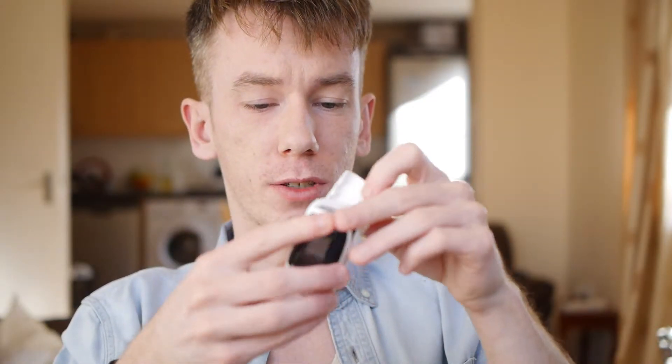$10 — I think it's pretty handy. I think every home really should have one, especially if you are prone to these kinds of things — if you have asthma, if you have elderly relatives. It also detects your heart rate, so that's pretty cool. Obviously I'm not a doctor, so don't just rely on this one thing. I just think it's a handy thing to have, like a thermometer, and I'm a really big fan of having preventative things around your house to stop you having to go to the doctor.